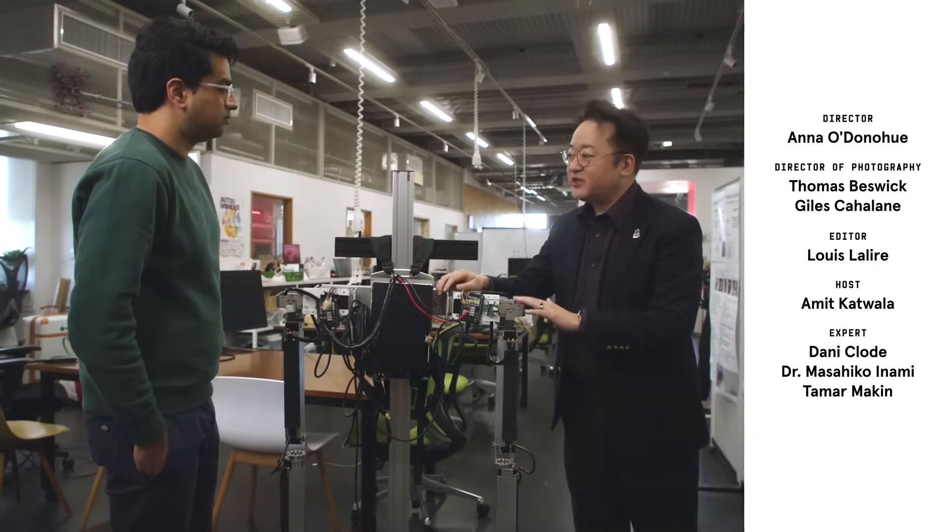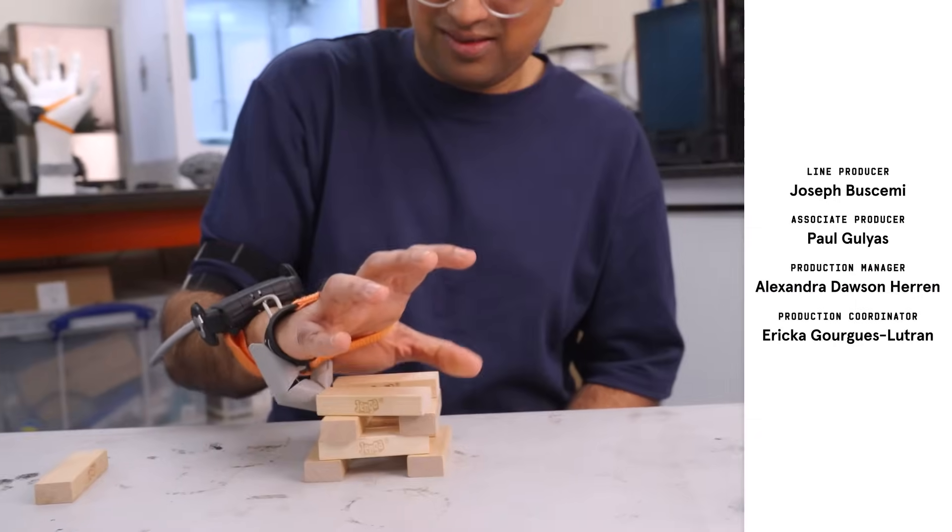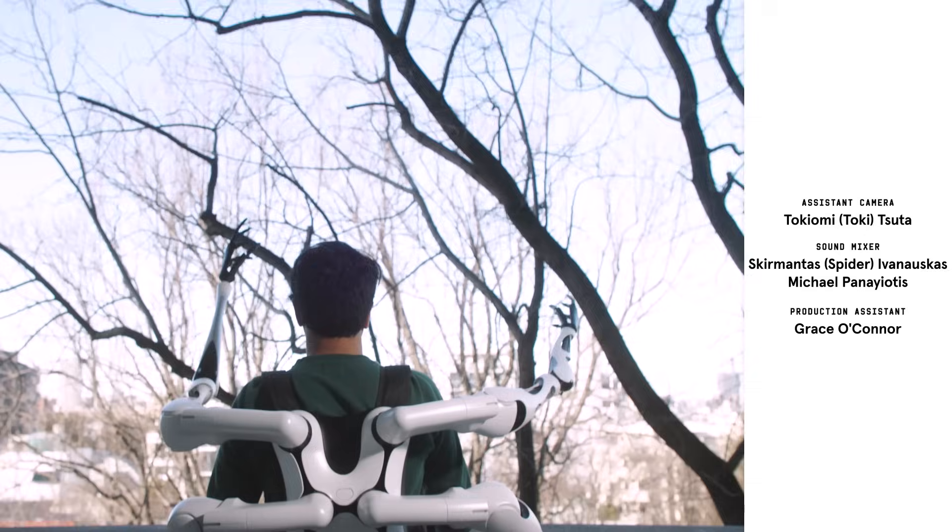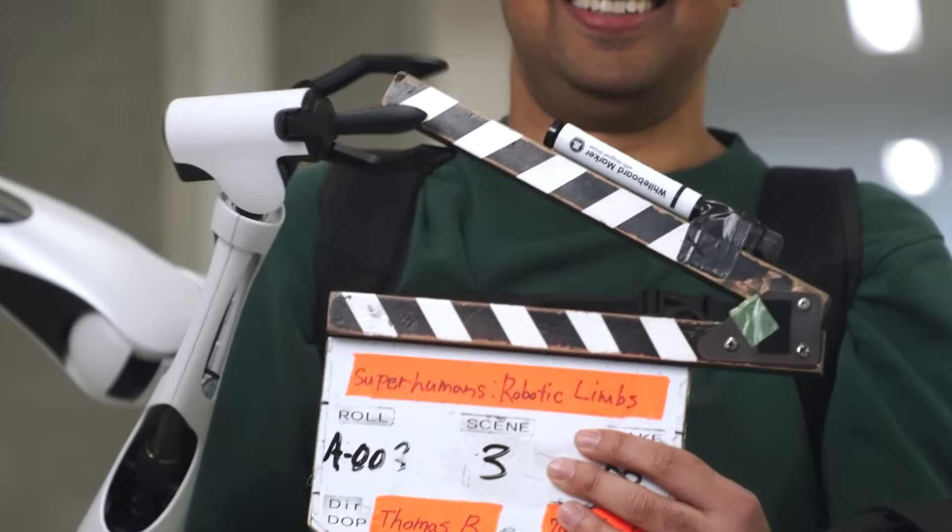I'm not sure I need extra arms or another thumb just yet, but the idea of a world where becoming superhuman is as easy as strapping on a backpack? I give that three thumbs up.